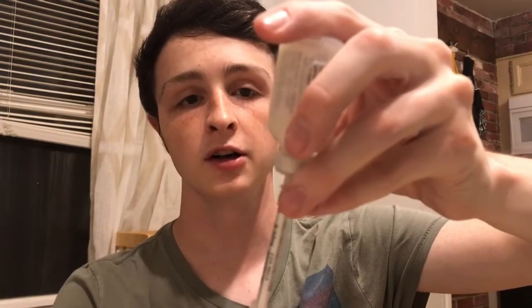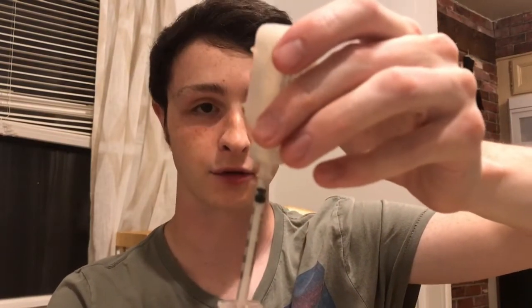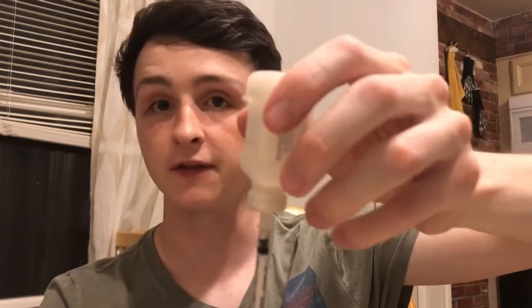That way you let gravity do the work. You pull back slowly until you hit that 3-unit mark. Now you might notice that you have an air bubble in there — if that's the case, that's fine. You just push it back; you might hear a snap or a little crack, that's just the bubble going back in. Then you pull it again slowly. Hopefully this time you won't see any bubbles. If you see another bubble, just push it back again until you get that bubble out, then pull it back out until you hit that 3-unit mark. You always want to make sure the bubbles are out, because if there are any bubbles, that's going to cause issues — you don't want to inject air into yourself, and that means you're not getting as much insulin as you think you're getting.